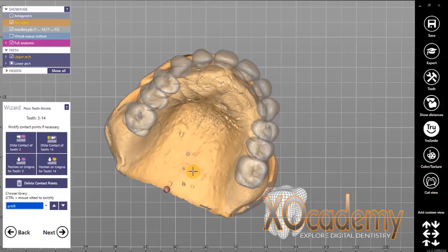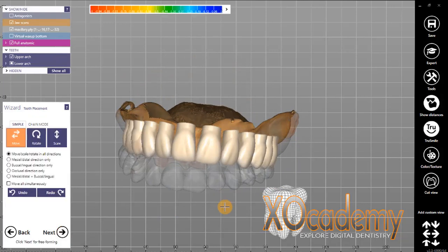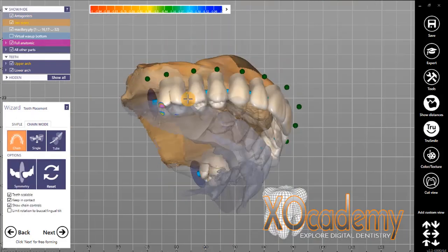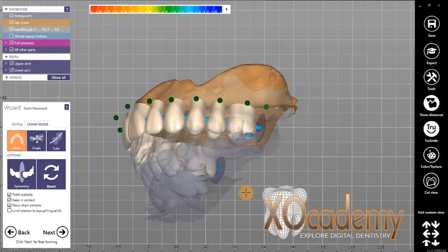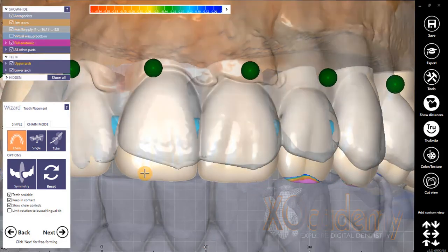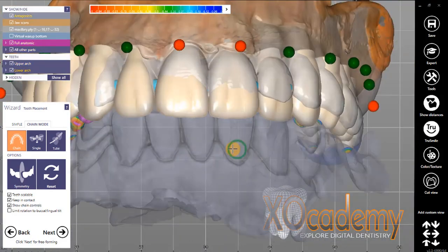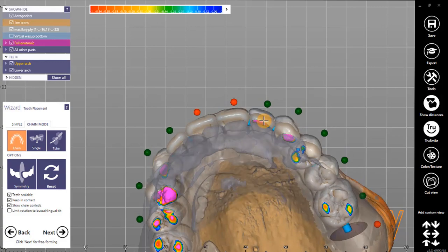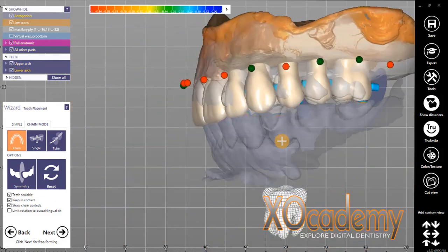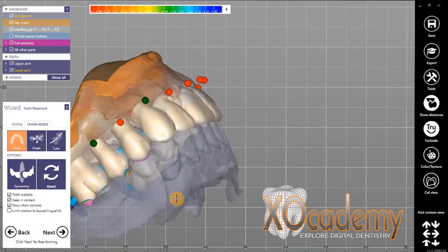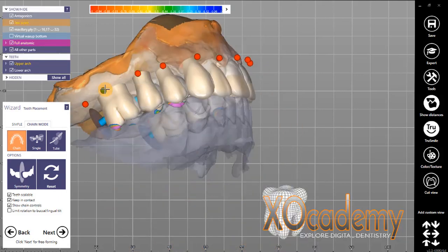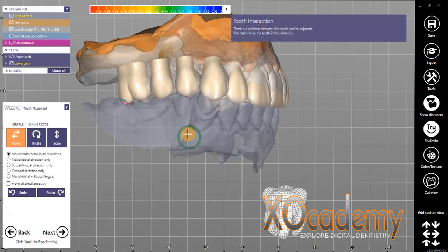This is where your artistry really comes in. You can see that ExoCAD places the teeth initially, but it's not a good proposal right out of the gate, so you've got to move those teeth around to where you want and where the occlusion is going to be spot on. In this particular case we're using the chain mode, so all of the teeth move together. Those green dots let you lock certain areas and move others — green means you can move it, red means it's locked. In the order that you lock and unlock those teeth, you can move certain teeth while maintaining contact. I'm just trying to rearrange the posterior teeth because the anteriors are in the right position.